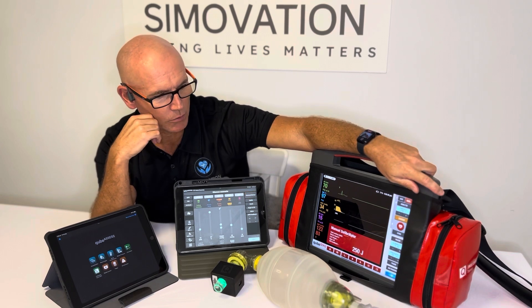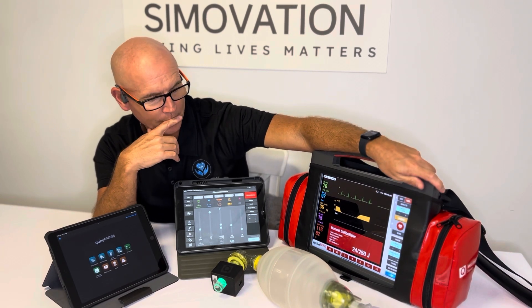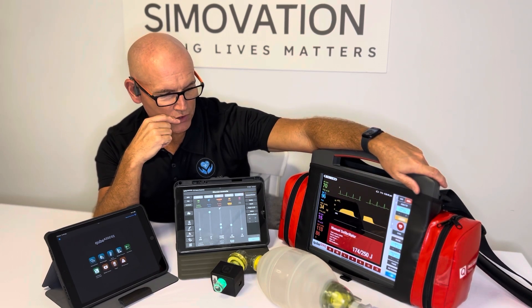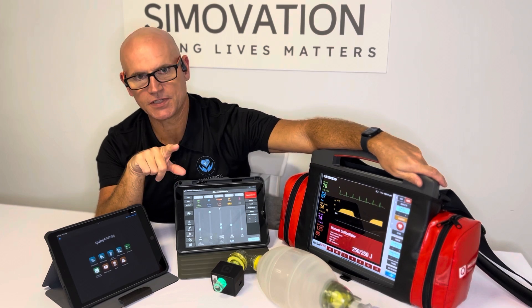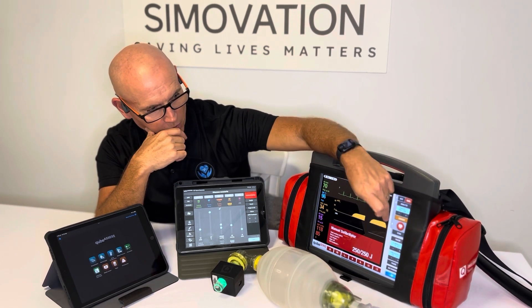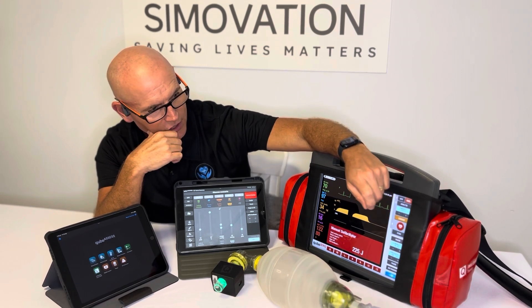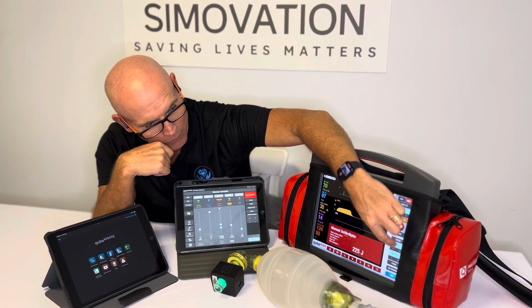Now I'll pop it into manual mode and charge that up. Down the bottom of the screen you can see where it's charging. There's no charge tone — I believe in the deeper settings you can change it. Now we can defibrillate, but we're not going to. I'll disarm by just changing the joules.